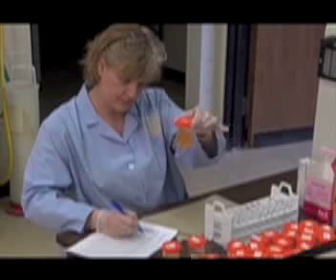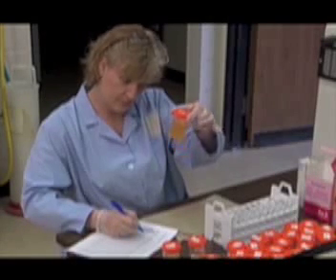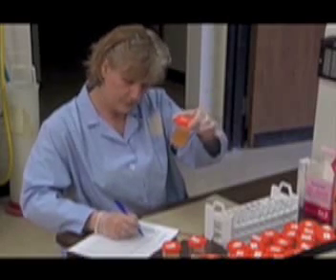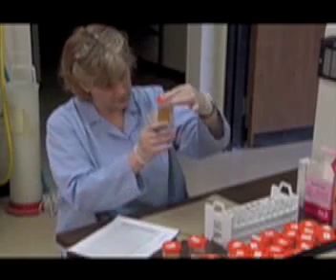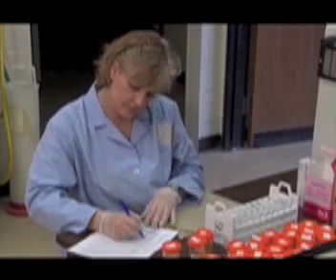The turbidity will range from clear to very turbid, and the volume is indicated on the side of the urine container. The sample color, turbidity, and the absence or presence of sediment should be noted. If the urine contains a sediment, it should be mixed into the sample. Once the technologist has completed these observations on all specimens, they are now ready to be prepared for analysis on the Urichem 1000.